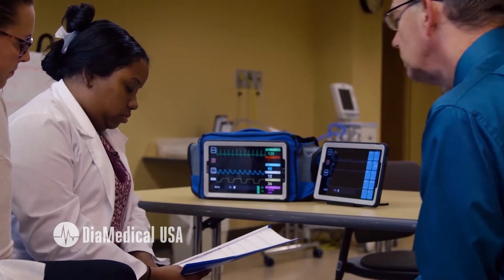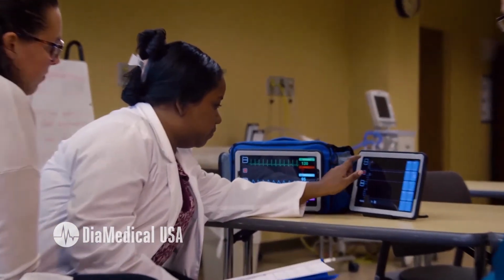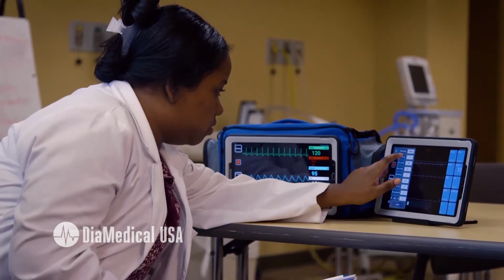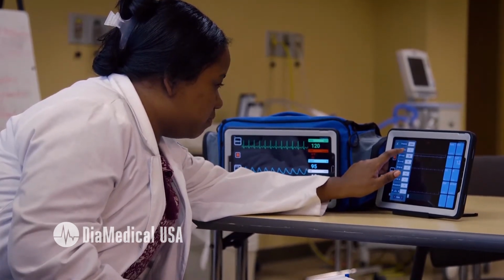The power of simulation is to put students in near real situations and develop their critical thinking skills. We wanted to take an opportunity to show you our new VentiSim respiratory care simulator in a couple of real-life situations and provide ideas of how it can be used. It's a multi-purpose tool that can add simulation both in a lab setting or in a classroom setting. That's what we wanted to show you today, the flexibility of the system.